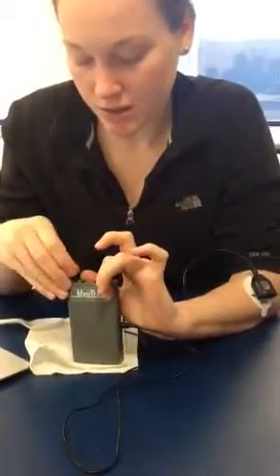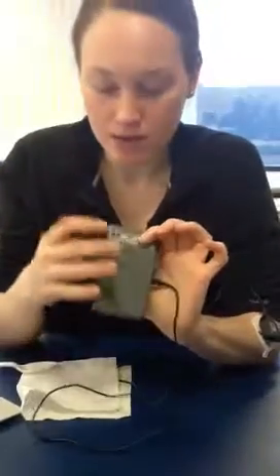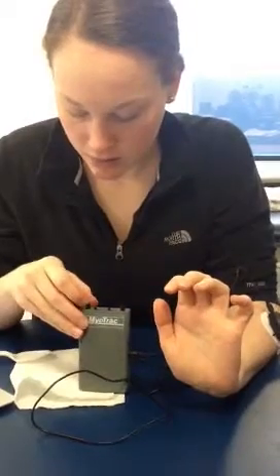So now I'm going to move the switch to a hundred and then we're going to turn that fine-tune adjustment down to the 0.5 so now I'm technically at 50 because a hundred times 0.5 is 50. Still to the far right. So now I'm going to make it a lower gain even more so.